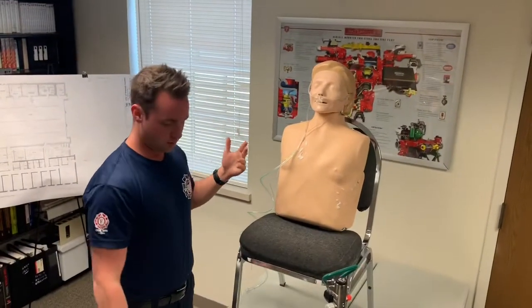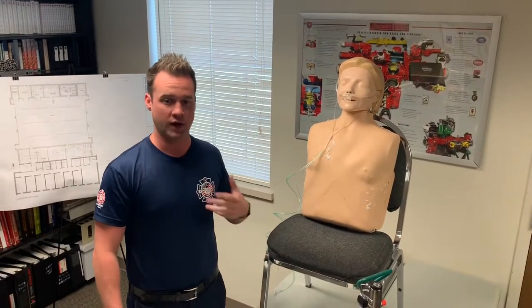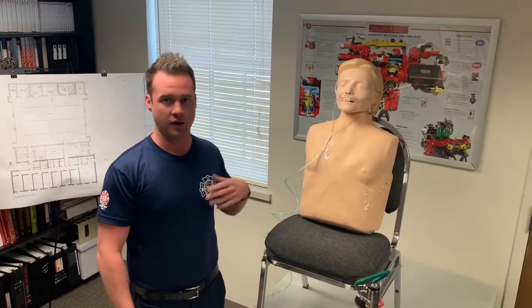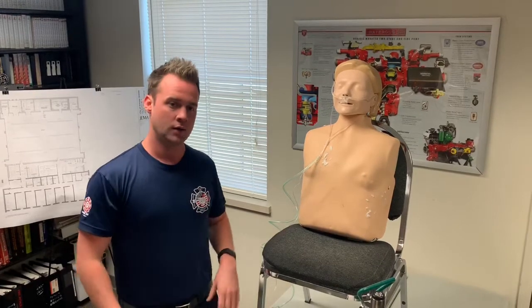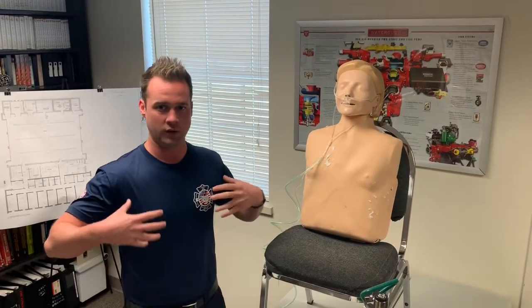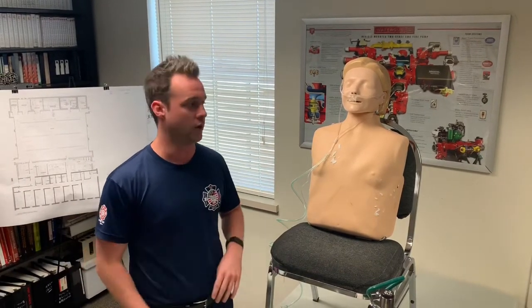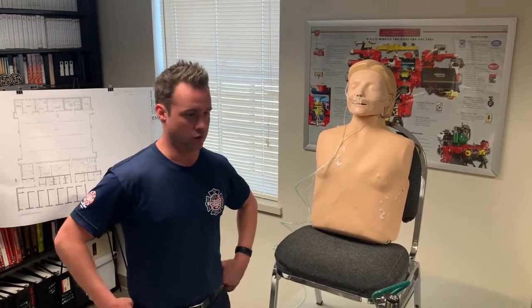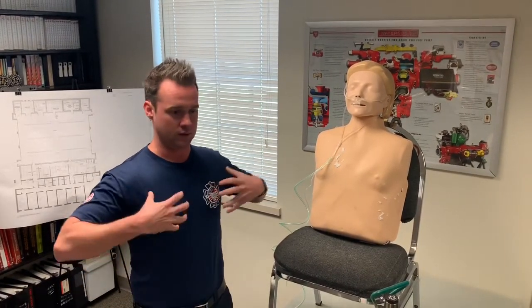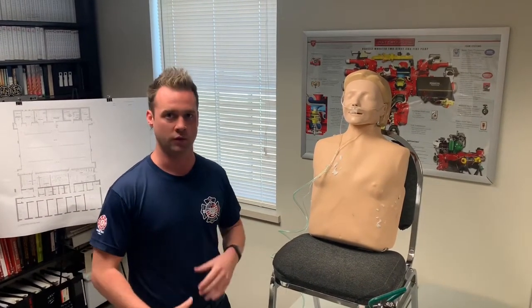So end-tidal monitoring can tell us a lot about how well the patient is actually moving air. Obviously, if they're having higher levels of CO2, that means that they are having a difficult time blowing that out. Most of the time, that's just due to the poor elasticity due to lung tissue disease. COPD, the reason we're putting them on in the first place. So even just putting them on end-tidal can often tell you how bad they need CPAP. And our goal is once we put them on and we can help inflate those lungs, they'll actually be able to exhale some of the CO2 that's trapped in their lungs.